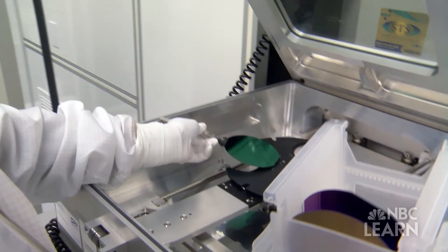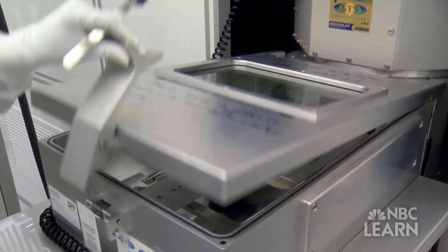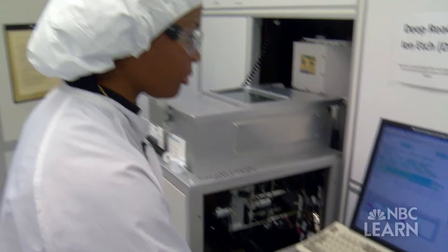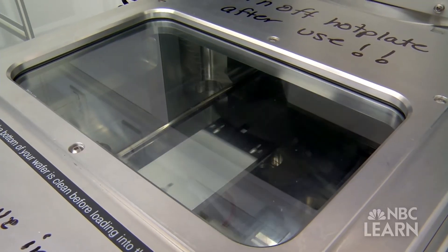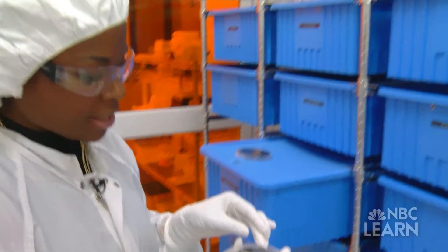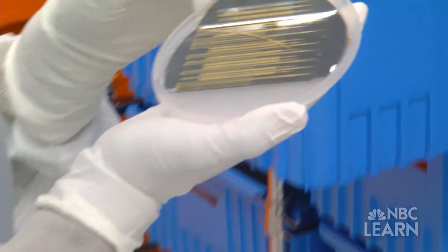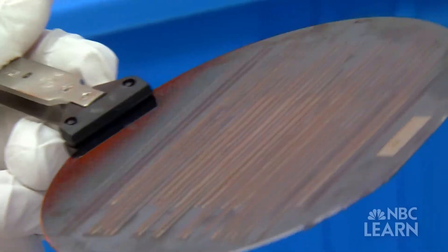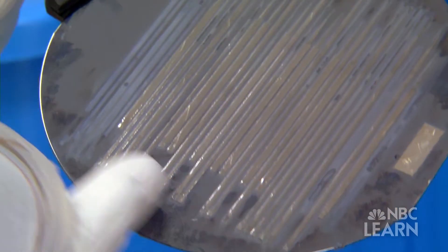Using machines to add or etch away layers of silicone, Johnson can create different designs and features on the electrode arrays, a process that has never been done before to produce these types of devices.